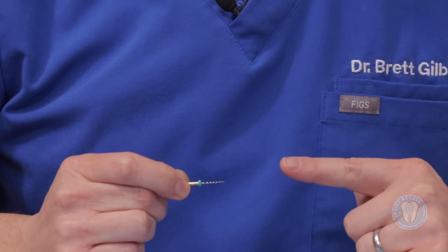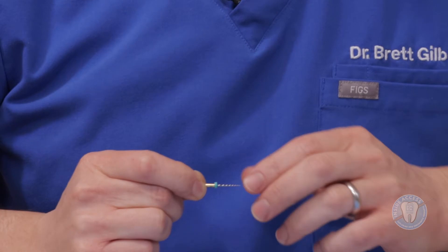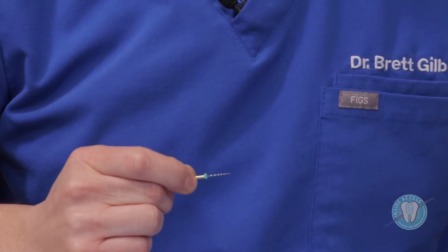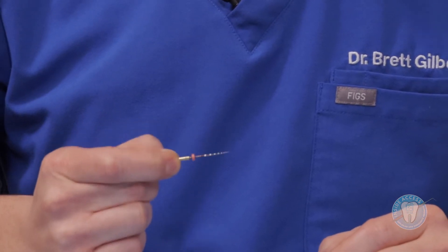Let's get into a little more detail with these Kerr Endodontics products, starting with the Traverse system. This is the Traverse orifice shaper. It's 25 at the tip with an 08 taper, and it's a 17 millimeter length. This is a highly flexible orifice shaper, which allows it to really flow with the natural anatomy. This is going to be the beginning of your crown down preparation to start with the coronal third.